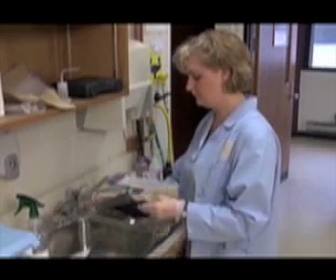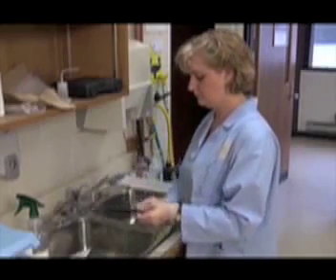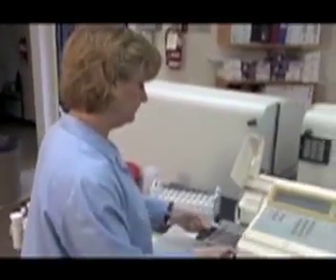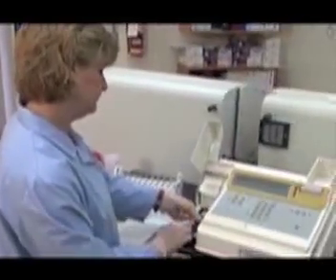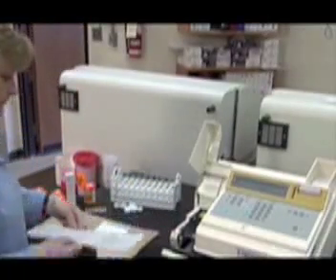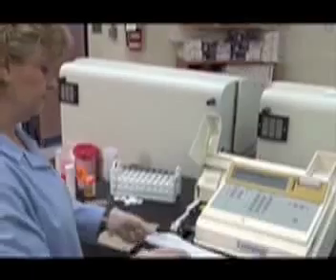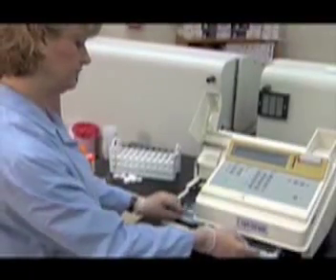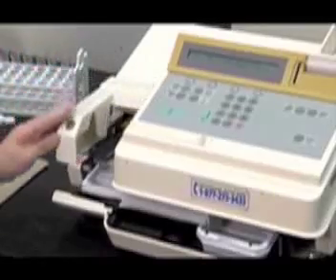Thoroughly dry the plate and carefully insert the plate back into the analyzer, making sure that the plate slides into the runner. Insert until firm resistance. Replace the tray and close the side door before pressing the Clean button to close the front door.